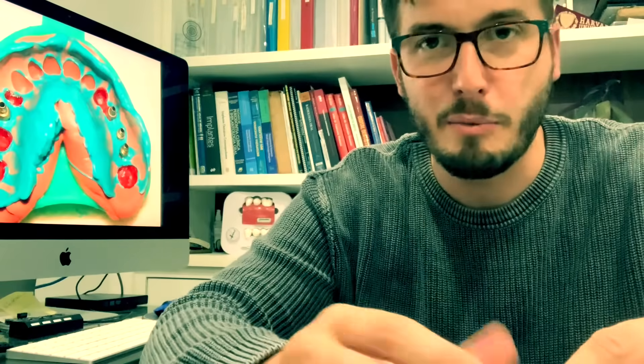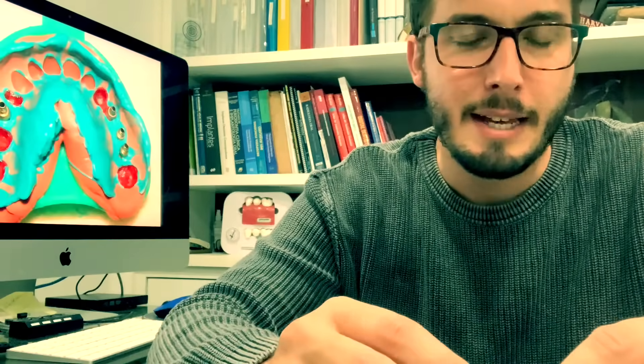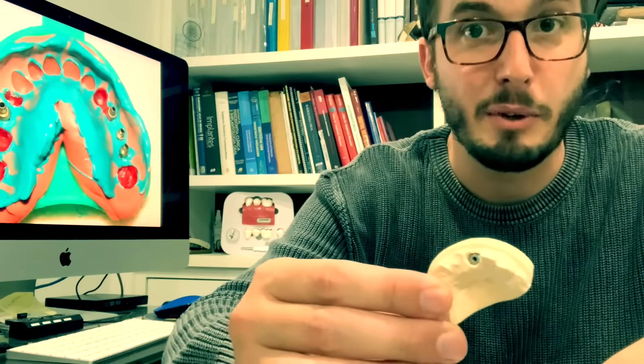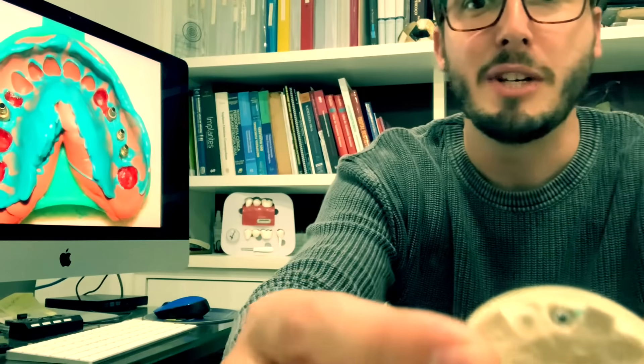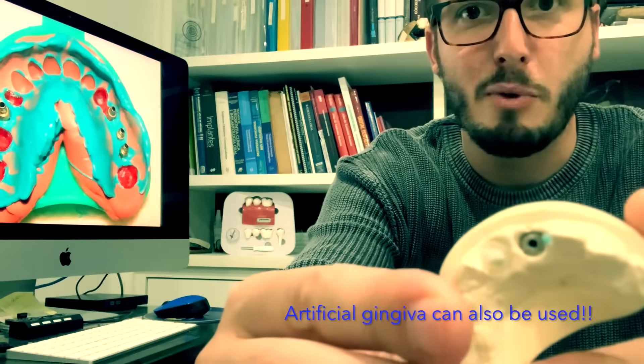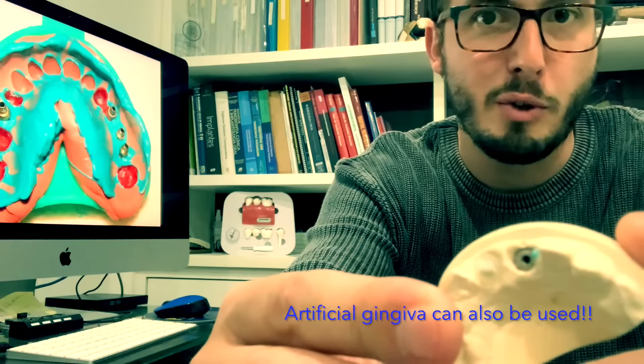And then you are going to receive a dental cast like this. So here we have a dental cast, just an example with an implant analog.